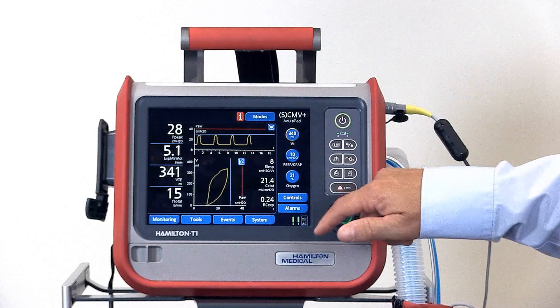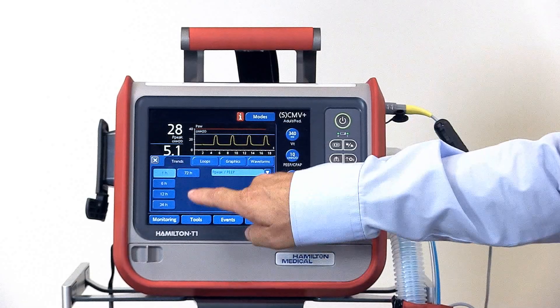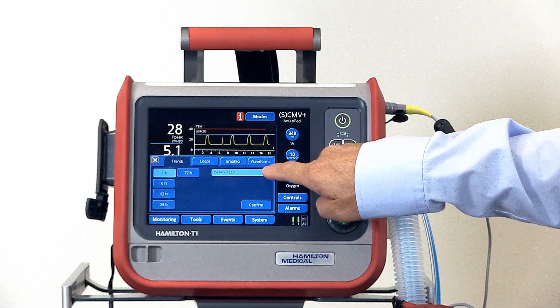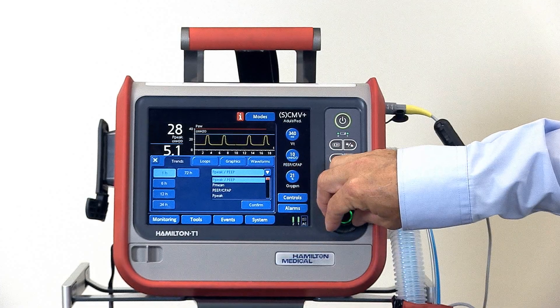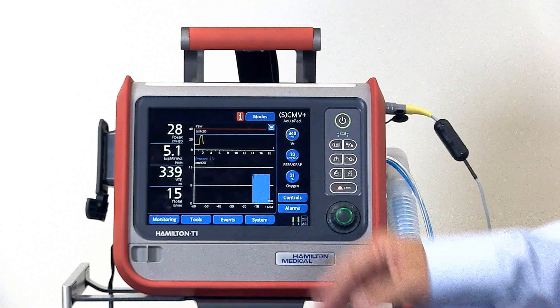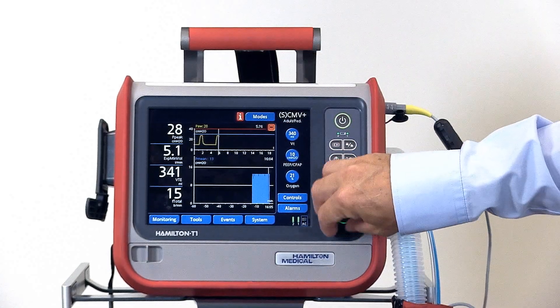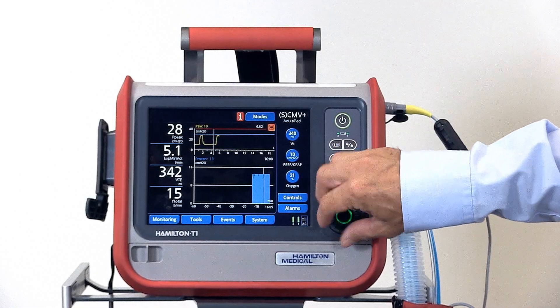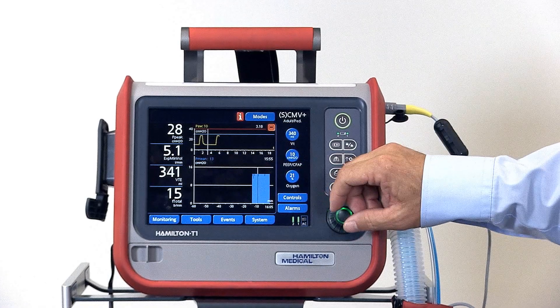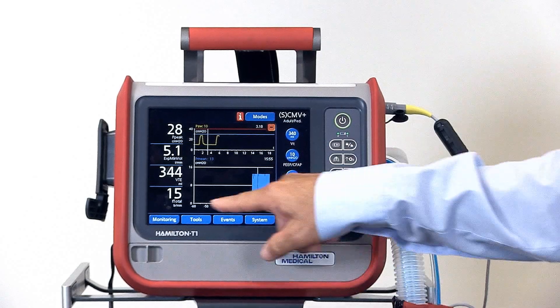The ventilator can also display trends of all monitoring values up to 72 hours. Simply select the time span you'd like to see, reach over to the drop-down menu, select the monitor value you'd like to trend, then confirm and the trend is displayed. You can also examine the trend by freezing the waveform, which brings up a cursor. Where the cursor is pointing, the value is displayed in the upper left-hand corner, the time is in the right-hand corner, and you also have the reverse time scaler.